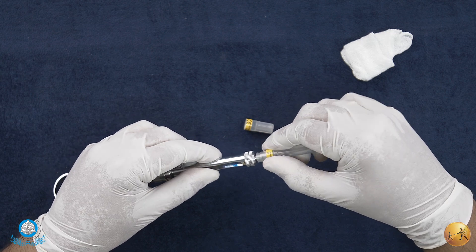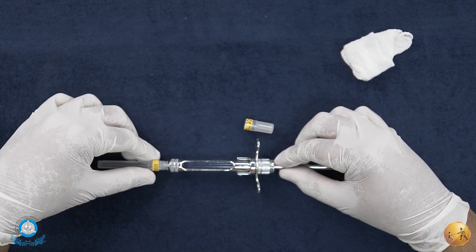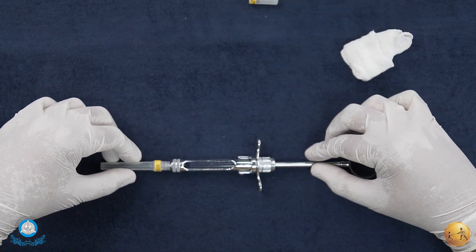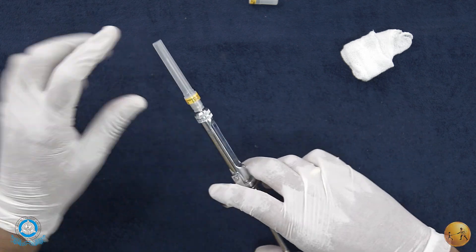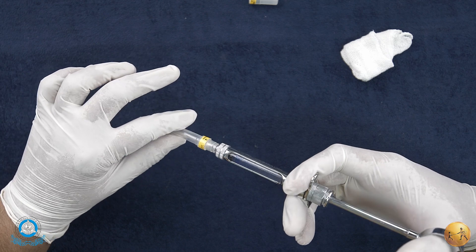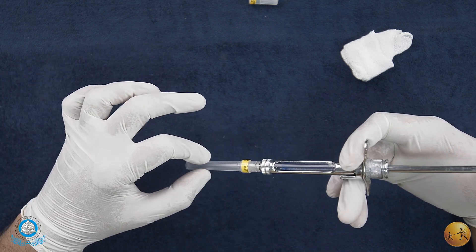Once it's fit, you see that there is a luer lock kind of system that basically locks in place, and that's your syringe loaded. Once you actually have to use the syringe, always note it's always safer to use a needle dispenser or a stand which will hold the cap.